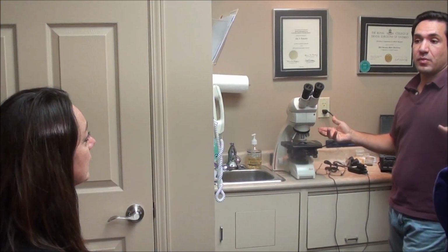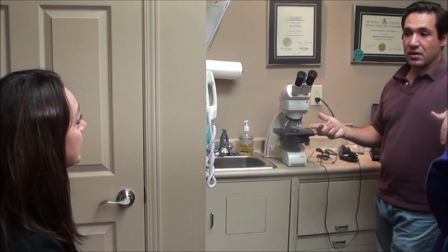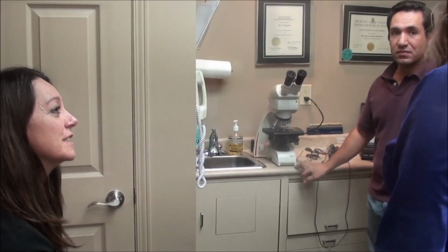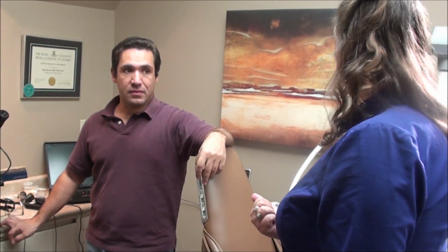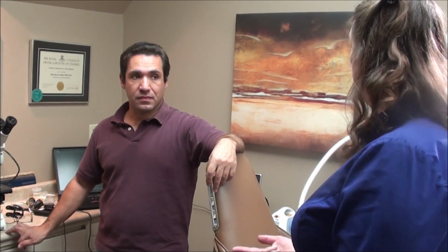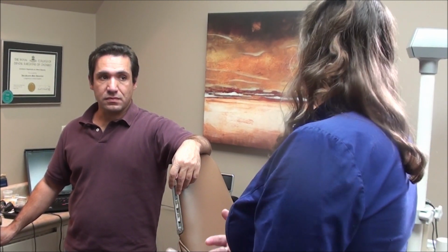Until you see it at a microscopic level, and you see the bacteria and all the rest that's happening there, you don't really appreciate what they're actually doing and why you're cleaning it, why you're doing what you're doing. That's the value of the microscope, because as soon as the client is able to see what's going on in their mouth from a bacteria level, they're shocked that they see something moving around in their mouth. They can't believe that it's in their mouth. They now want to do something differently, rather than having somebody just say you need to brush and floss differently, or you need to brush and floss more. You've connected with them so that you're able to move them to a different health level.